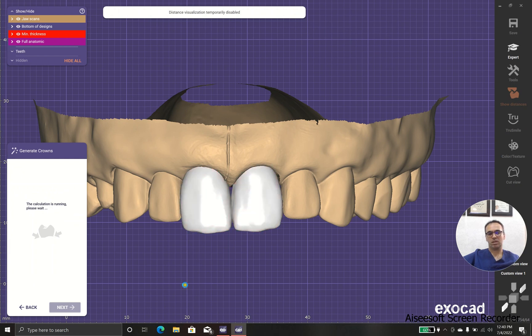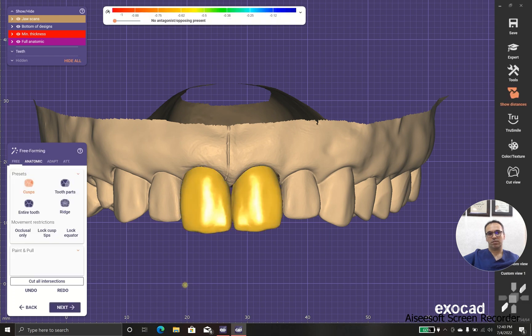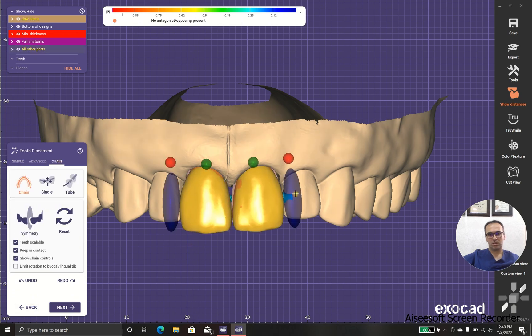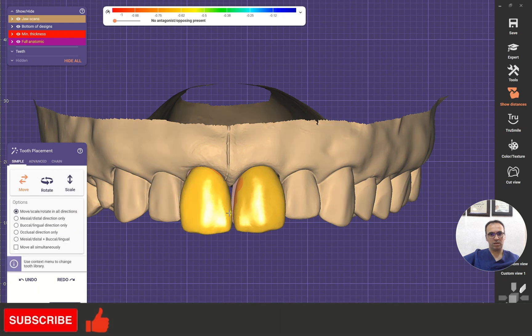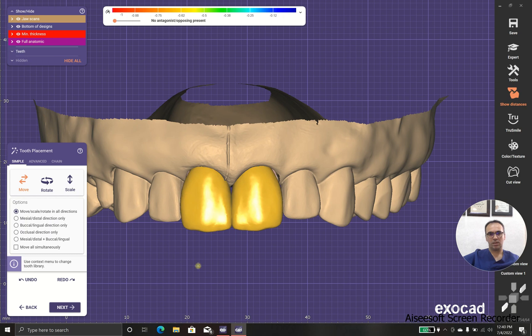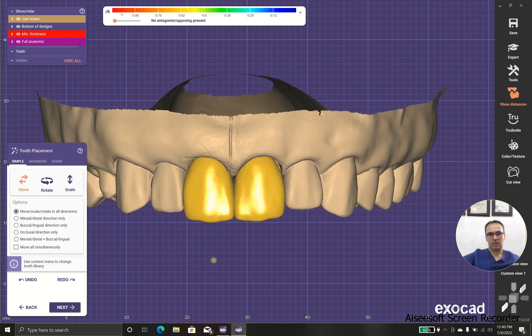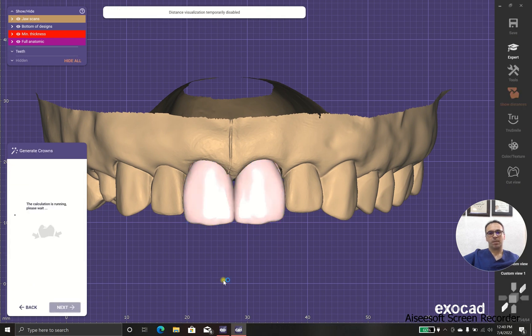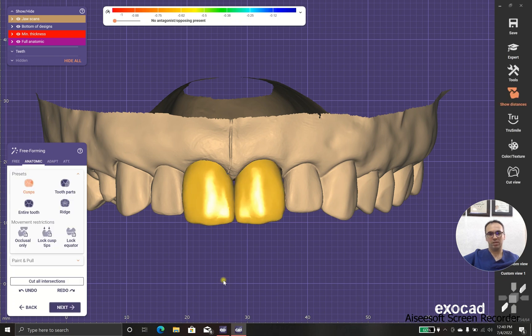I will let the software calculate the first image. It's good, but I think I could do better. I will make it larger and put it over here, and a little bit down. Now let's see what we got — I hope this time we have better results. And yes, we have far better results.